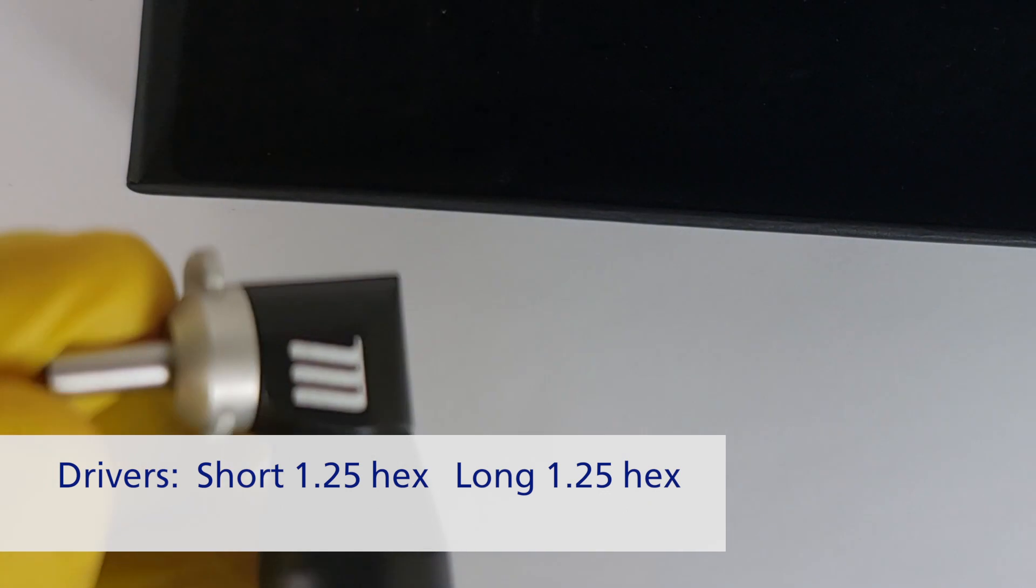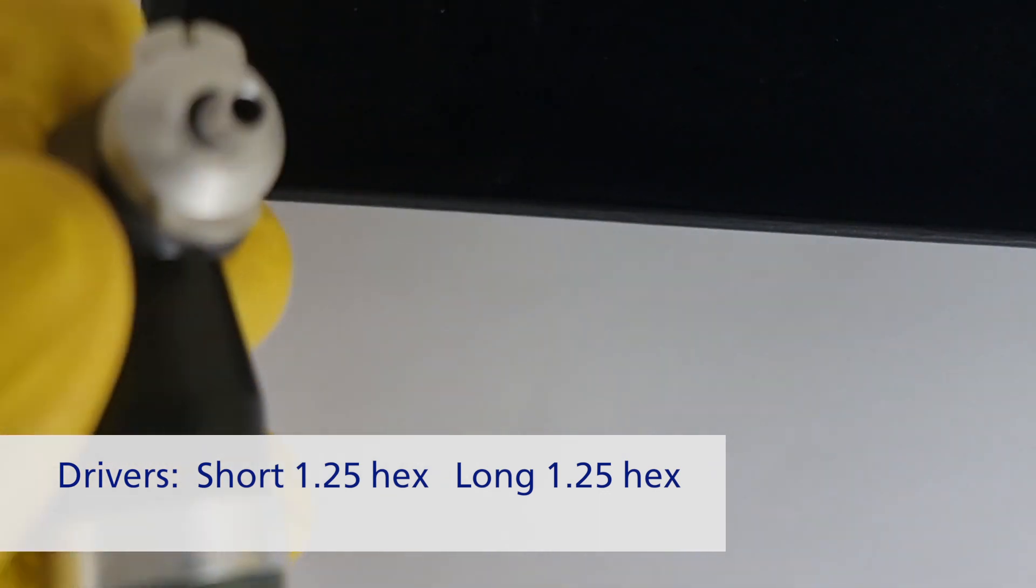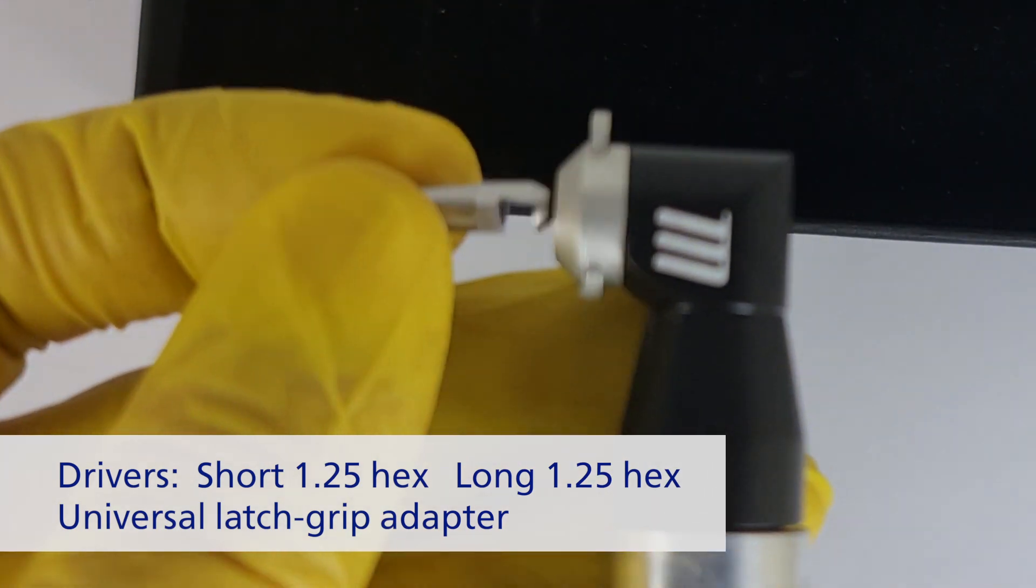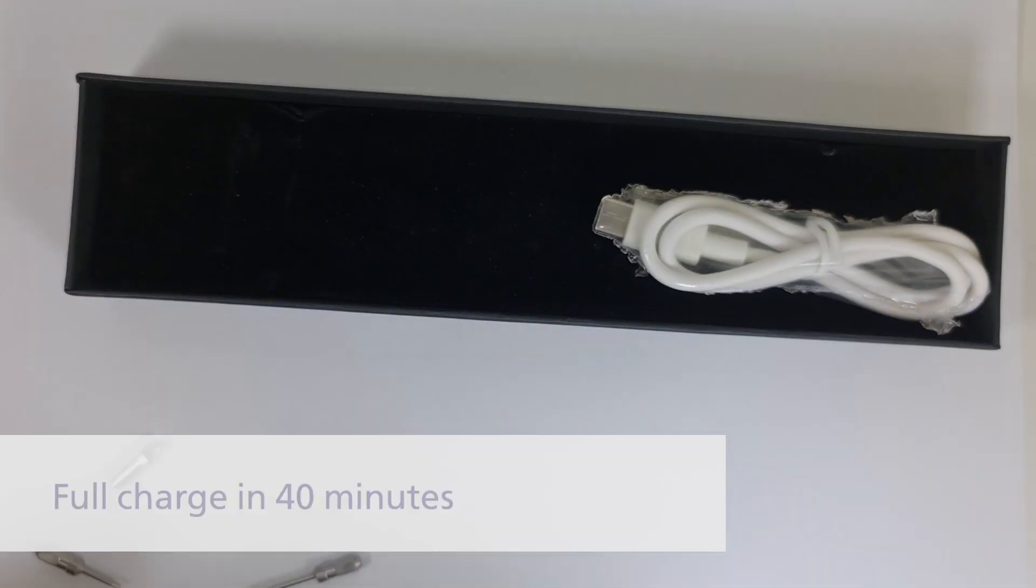Together with the standard long and short hex, you also receive the universal adapter which provides you the option to use any kind of motor mount for any system.